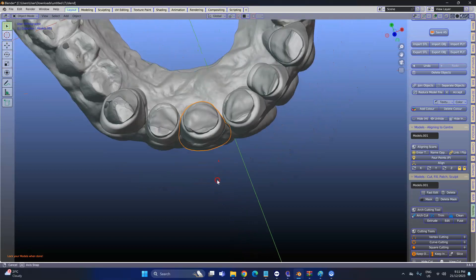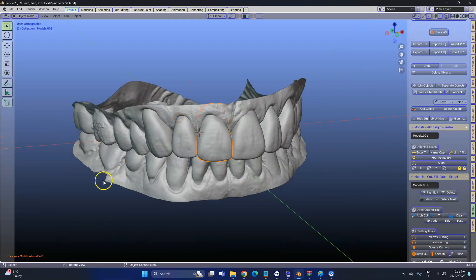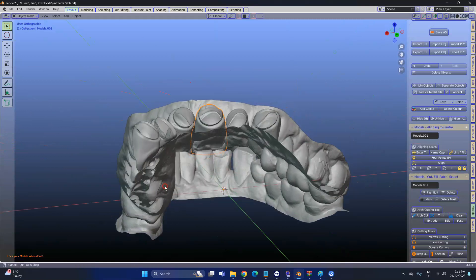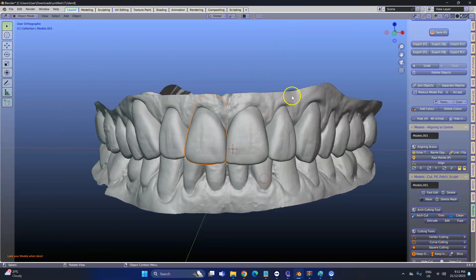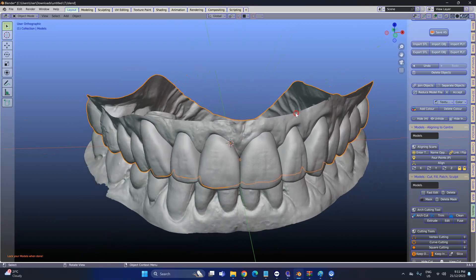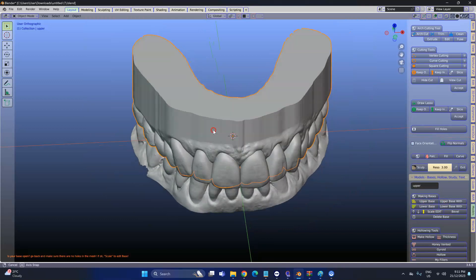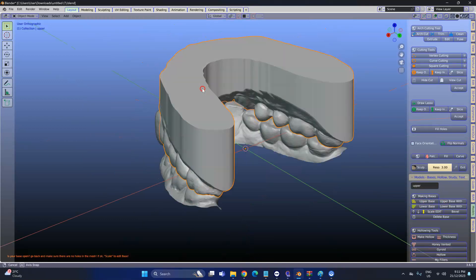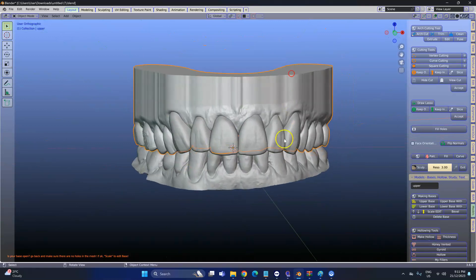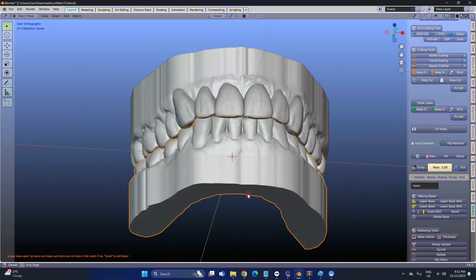Now the problem that you have is everything is open. The good thing is that you've got quite a neat cut, a border along which makes it easy. So what I'm going to do is click on Extrude into Base — upper base. Check your base that it is nice and closed here, which it is, which is really awesome. Take this one and then lower base, make a lower base.